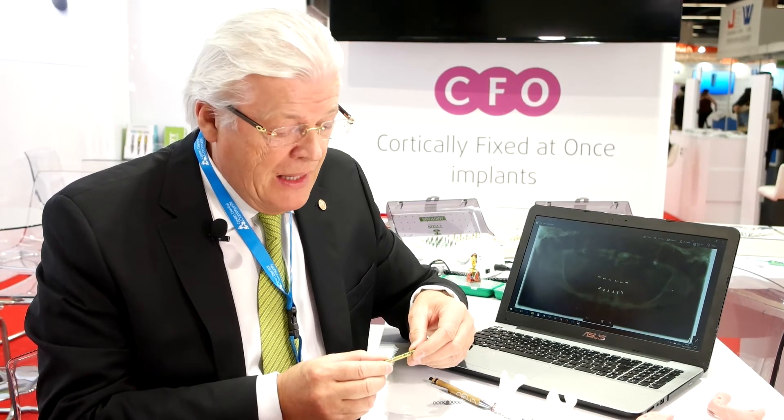The plates are fixed with special osteosynthetic screws. In the mandible specifically, these screws are surface-treated with hydroxyapatite tricalcium phosphate so they may act as mini implants. The plate itself is also treated with hydroxyapatite tricalcium phosphate, and together the screws provide a great fixation.